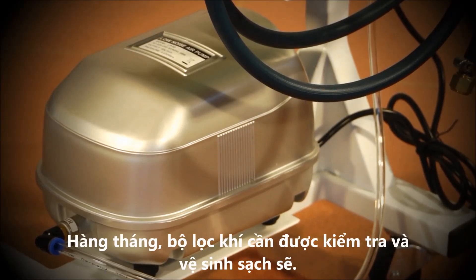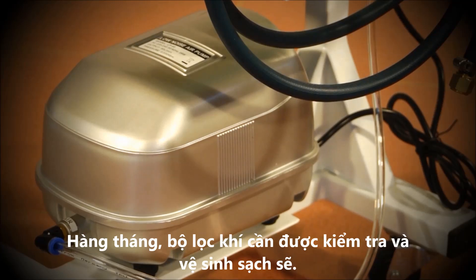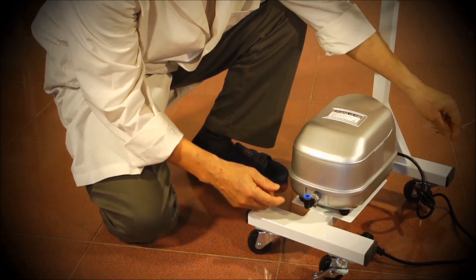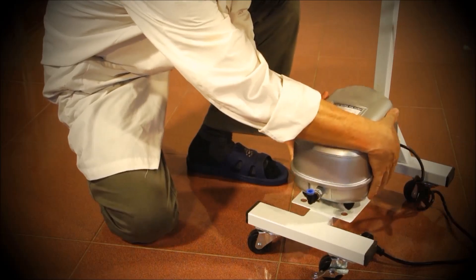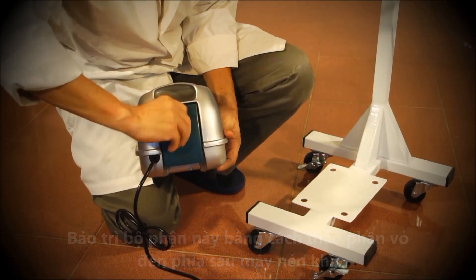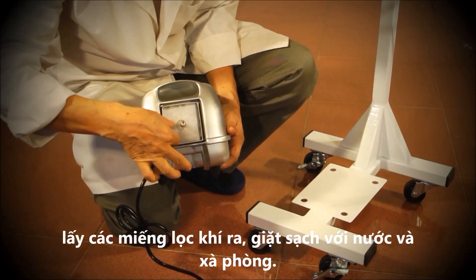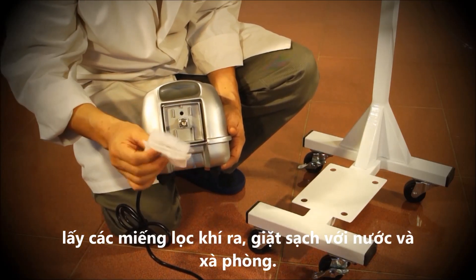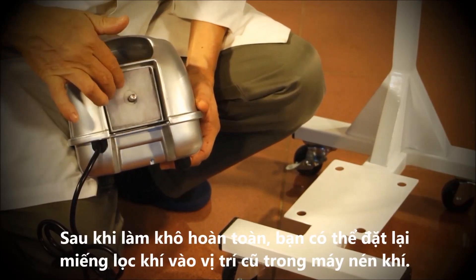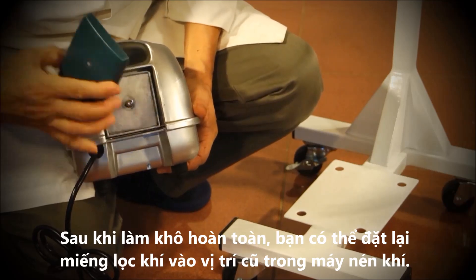Once a month, the air filter should be checked and cleaned. You can do this by removing the back panel of the air compressor, taking out the air filter, and washing it with soap and water. Once the air filter is completely dry, you can place it back into the air compressor.